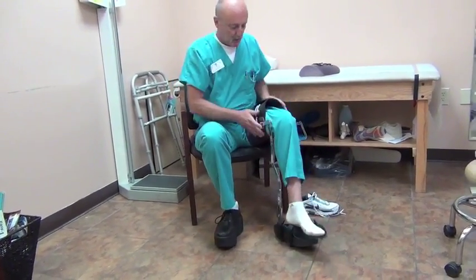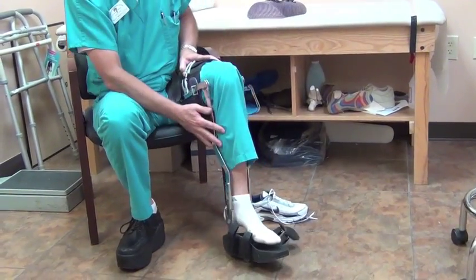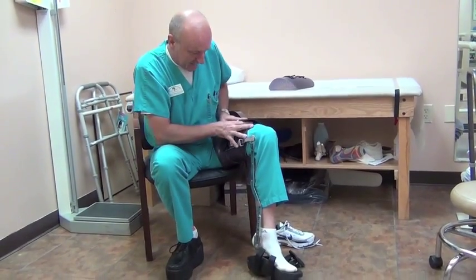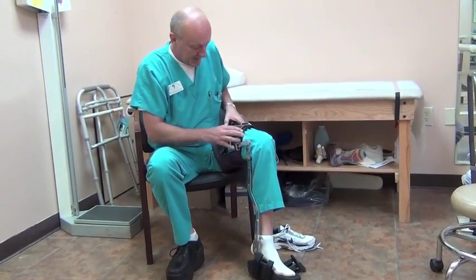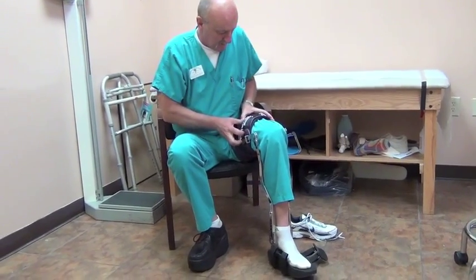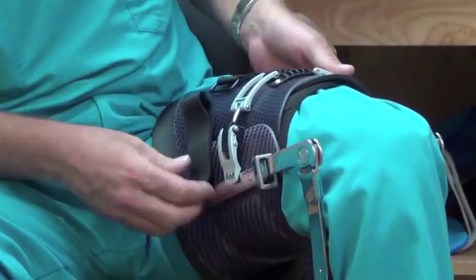To put it on is really quite simple. You set your leg in there, you close the front. If it was in a shoe, the foot would be actually out of the shoe and the toe would be in and the heel would be lined up, which would be completely out of the shoe. Then you apply your front shell and you lock down your cuffs just on the first catch.